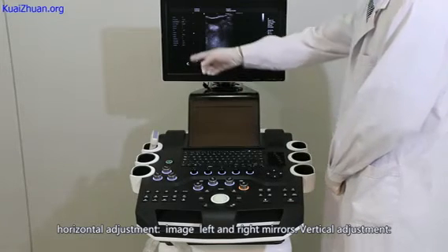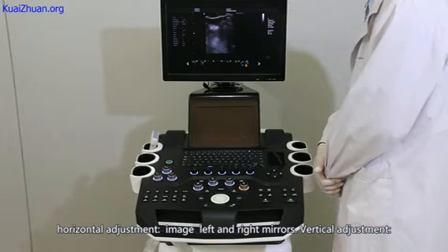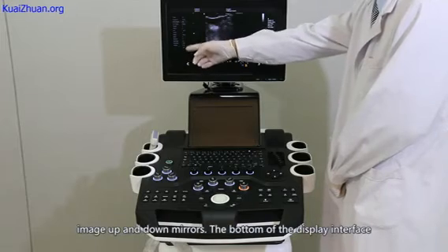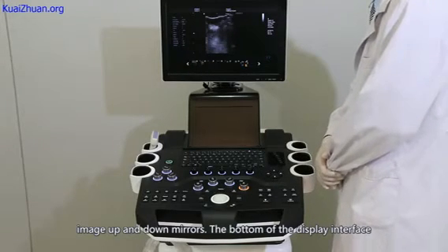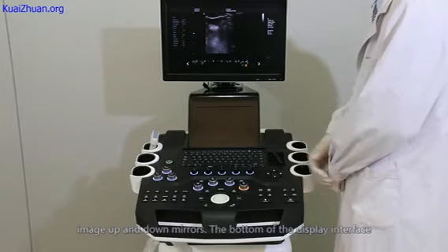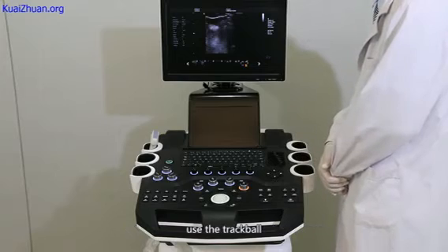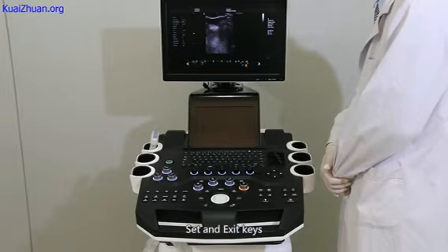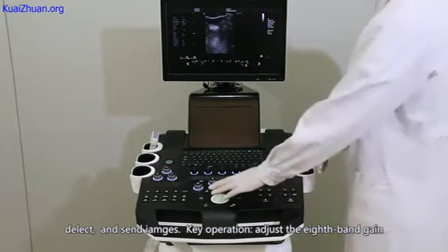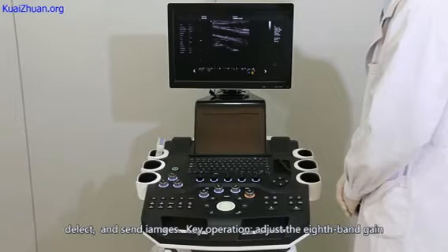Horizontal adjustment. Image left and right mirrors. Vertical adjustment. The image up and down mirrors. The bottom of the display interface is the image and video storage display area. Use the trackball, set, and exit keys to view, delete, and send images. Key operation.